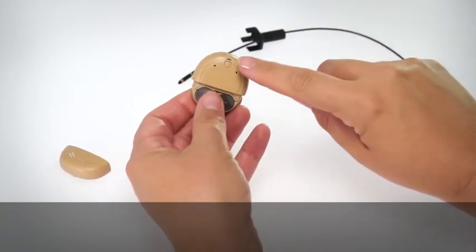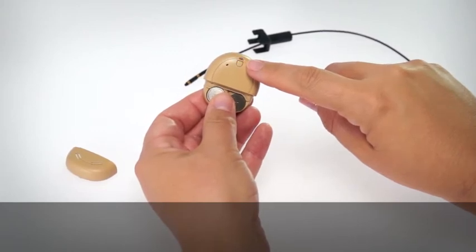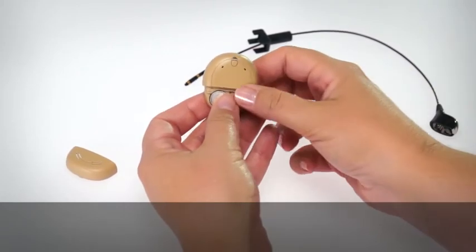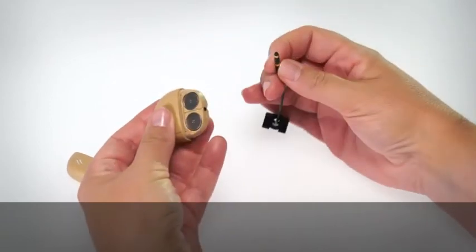The Kanso will automatically turn on. Connect the Kanso adapter cable to the processor.